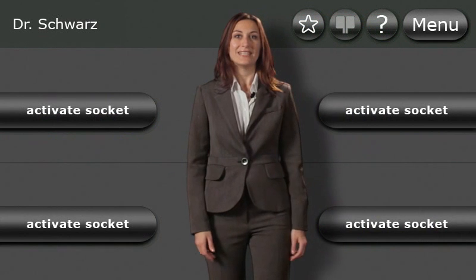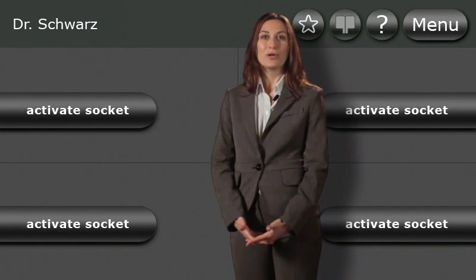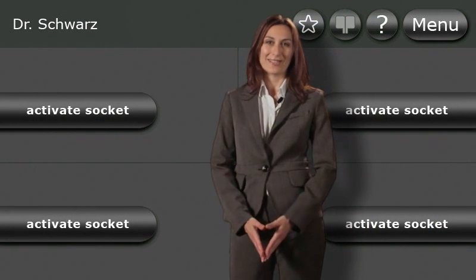You have now seen the main functions and operation modes of Arc400. Enjoy the benefits of the intuitive operation. Thank you for your kind attention.